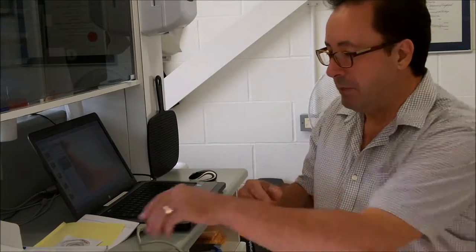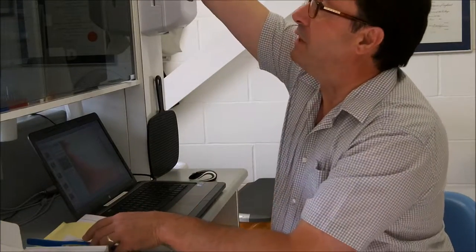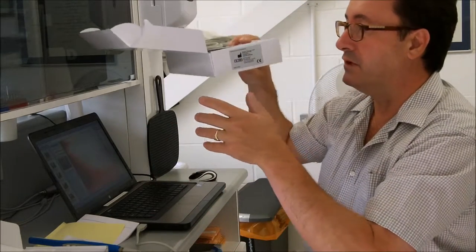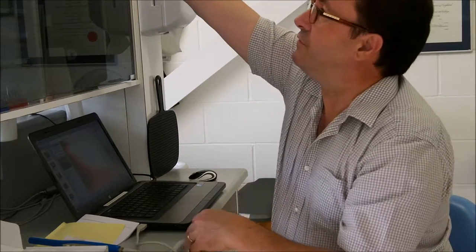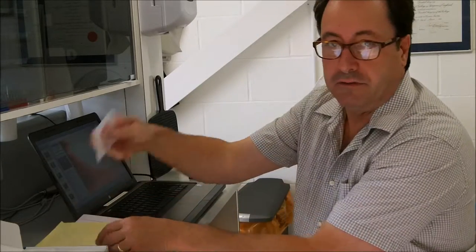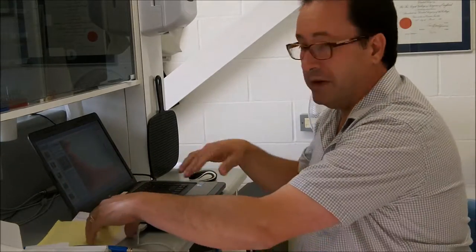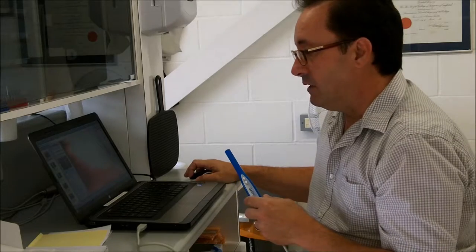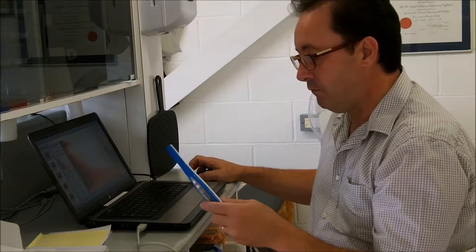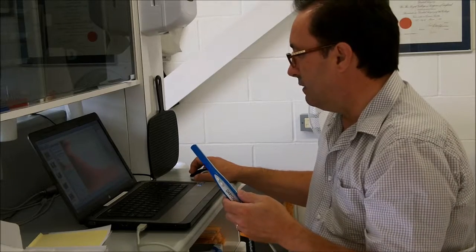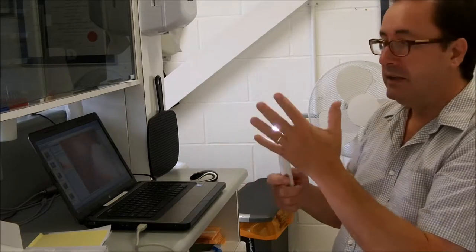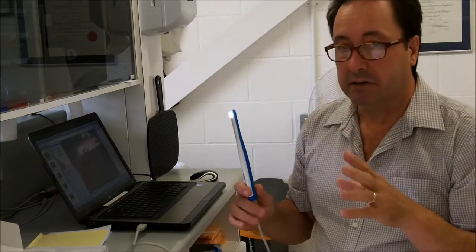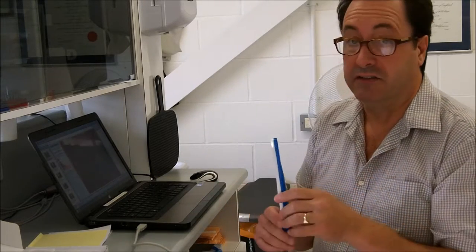Right. I've had a little muck about with the two cameras. I'm sort of keeping them separate in two boxes, so I don't mix everything up. Because I think I am going to send one of these back. First of all, as far as installation goes, you don't need to worry about these little things. Literally, you just plug them in, and this is a Windows 10 laptop, and it's recognised straight away as a USB camera. So that's not a problem. You've got two buttons. You've got two buttons on here.